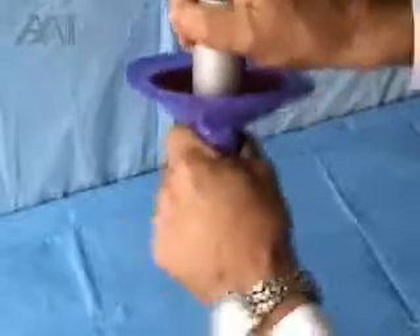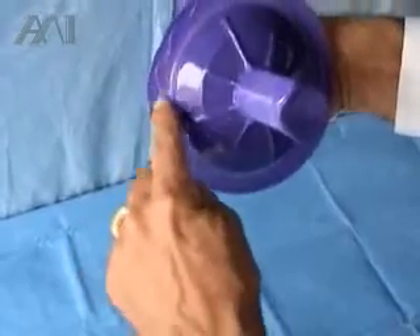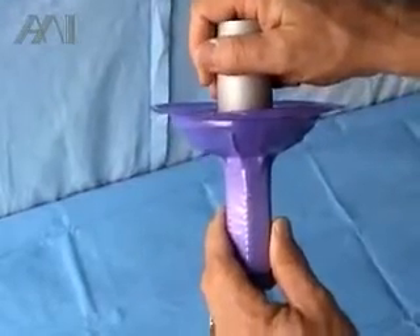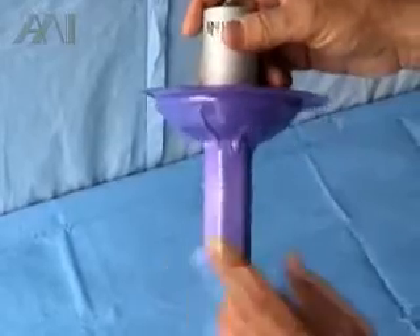Now the cover is very tight on the light. We have a serpentine rib around the cover to make sure it stays flat and doesn't curve up, so you don't get a chance to contaminate the cover and potentially work in a contaminated case.